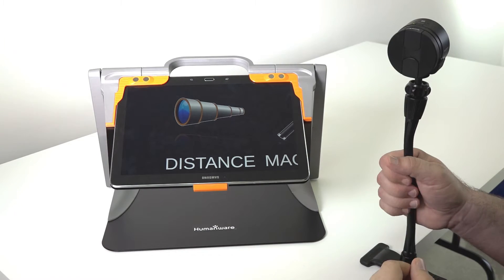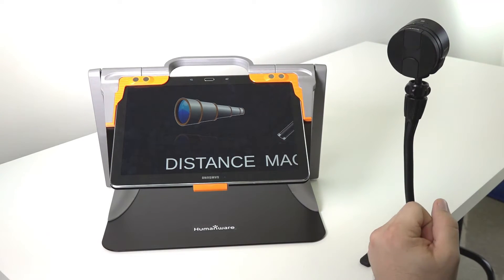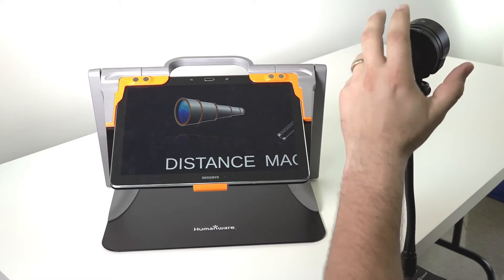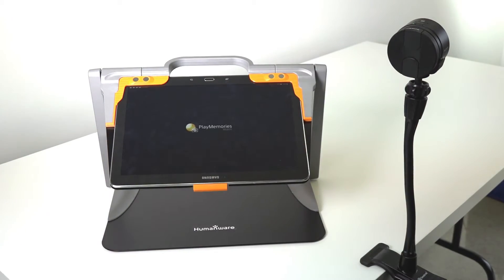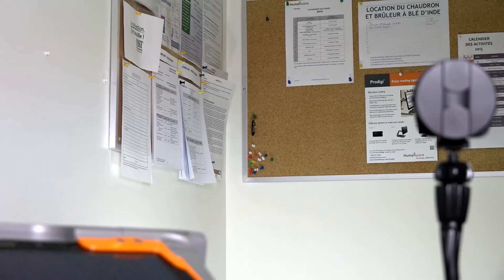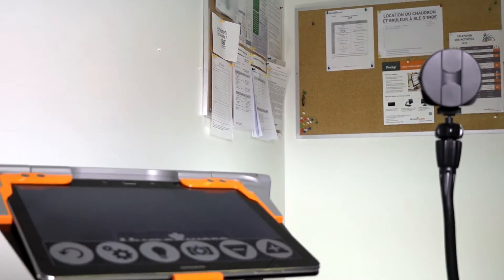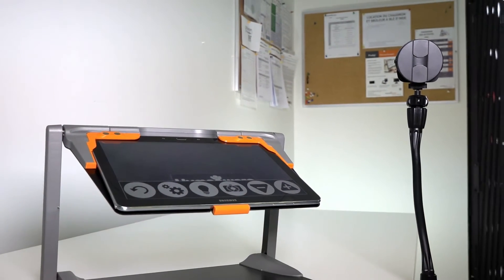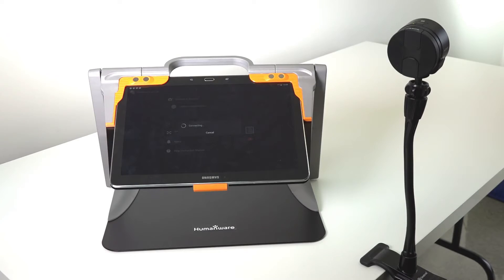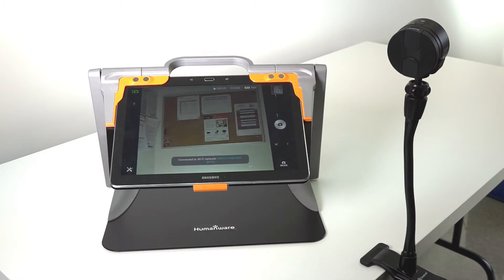The camera is on a gooseneck that you can twist and turn to get a better position. Once you've launched the application, the communication occurs between the tablet and the camera wirelessly and zooms in to a distance.